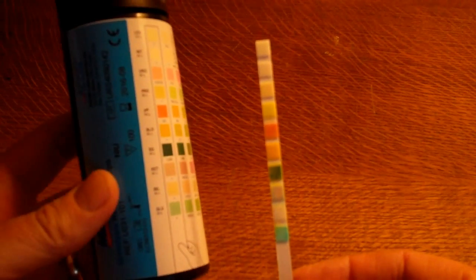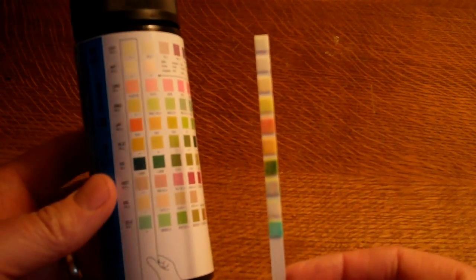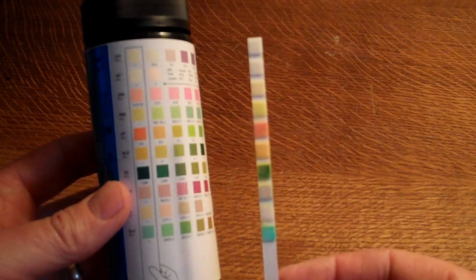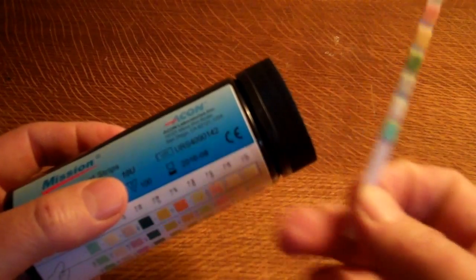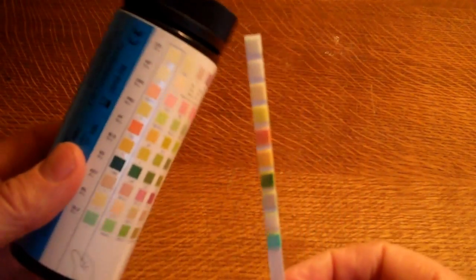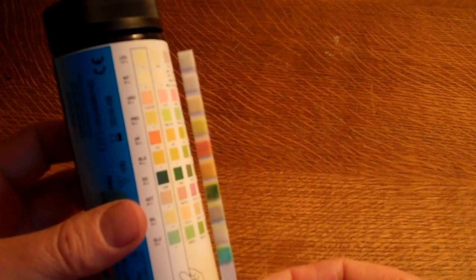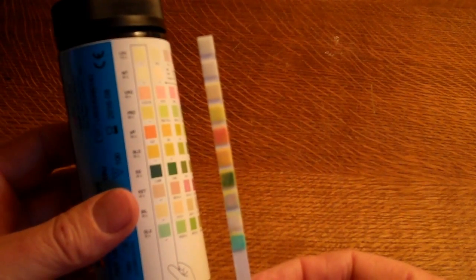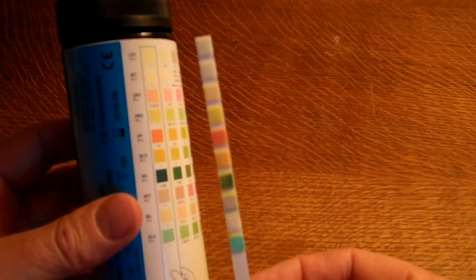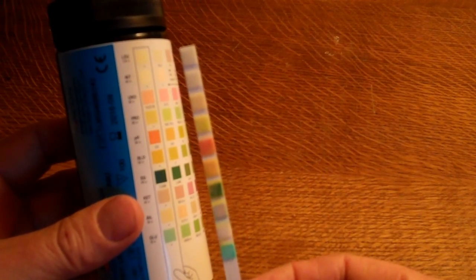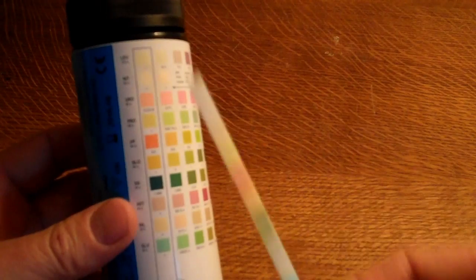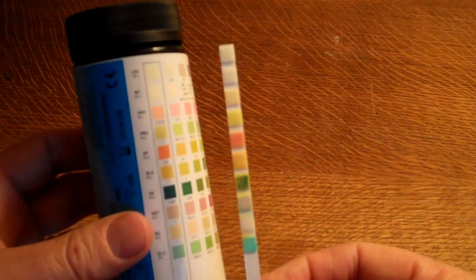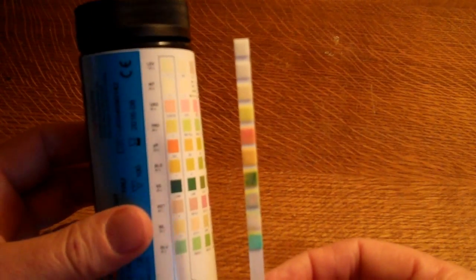They are proving extremely reliable compared to the leading brands which have been available for in excess of now 15 to 20 years. This product has full CE certification. Every single batch of these that's produced and shipped is batch tested and certified for its quality, and the accuracy, as I say, is extremely high. So they're a very reliable first line test to screen for these common ailments and parameters that can be detected in human urine as a mode for medical detection.